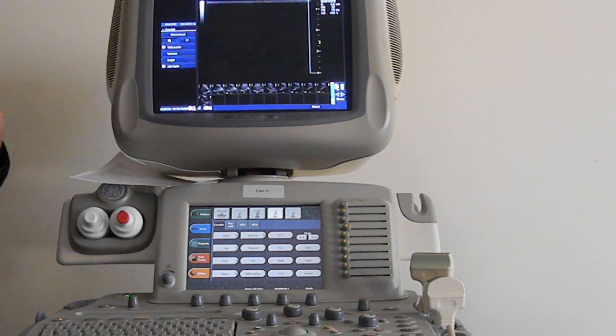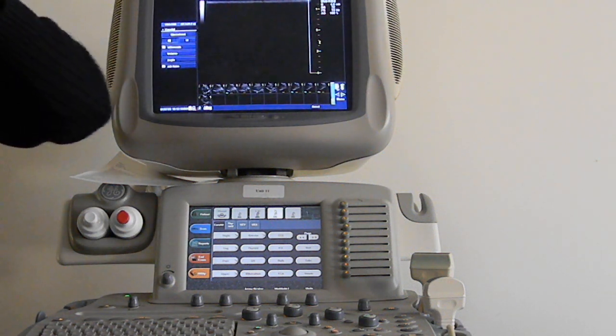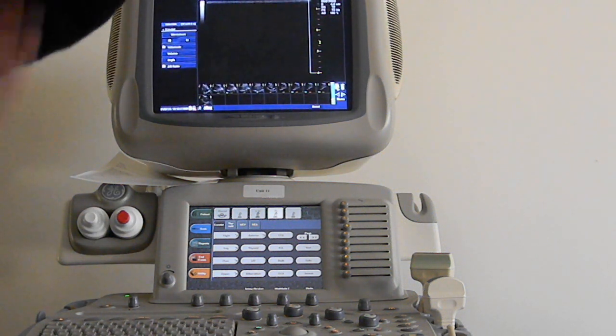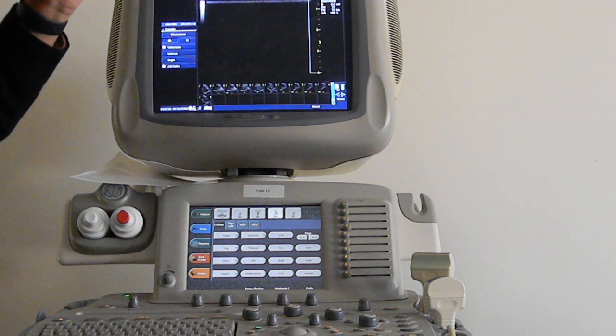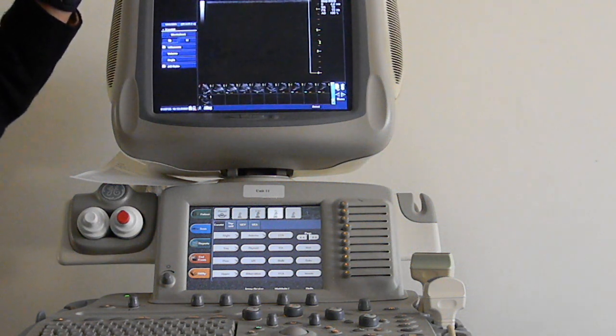Let's just put it this way. If I was looking here and my depth of field was 4 meters, that would mean only until a distance of 4 meters I'll be able to see. After that, my vision goes to 0. I'm literally blind beyond 4 meters.